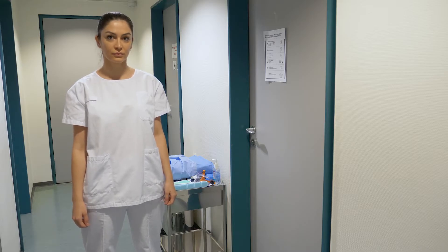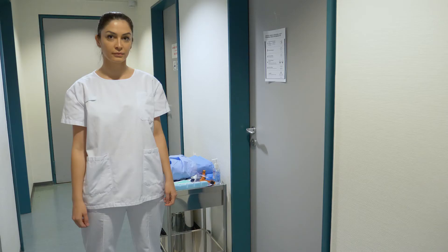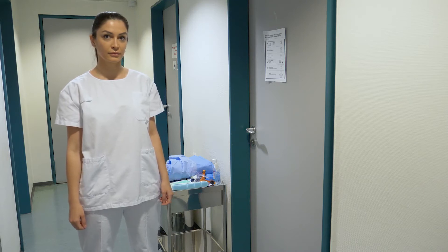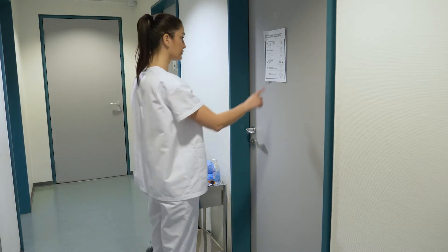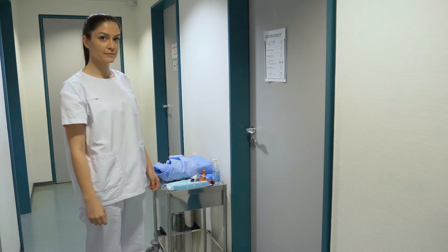The people most at risk of infection are those who are in close contact with a COVID patient, or healthcare workers who care for COVID patients. We made this video to demonstrate how you can best protect yourself as a healthcare worker when coming into contact with these patients. Ensure you remove all jewelry and personal items and that your hair is tied back if applicable. Consider the risk involved in the care you are going to provide to ensure you are using the appropriate PPE for the precautions needed.